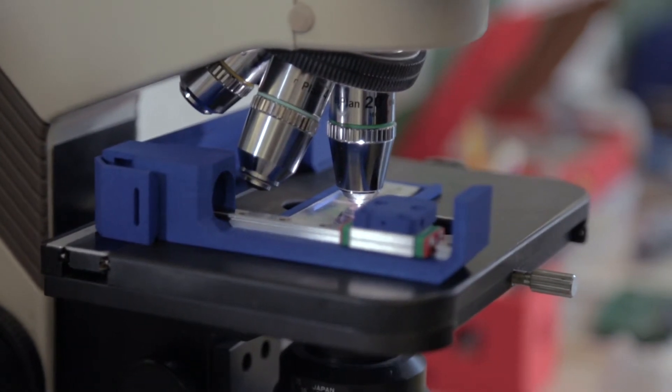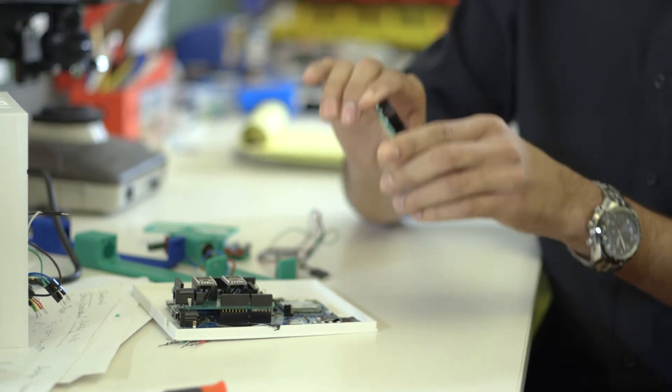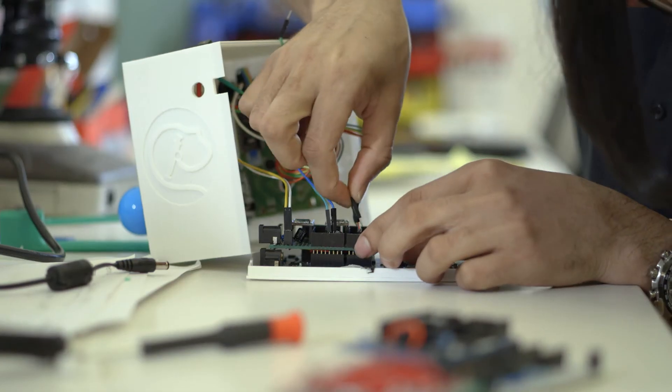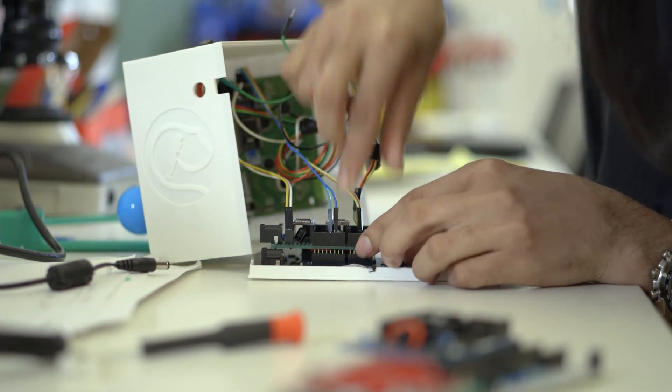It's all about working on your form factor to figure out what are going to be the components of your product and how is it going to work. It works in a repetitive motion every time—you're not going to have any failure. You want to go from something that works when you press this button to something that works every single time, no matter what, wherever it is in the world.